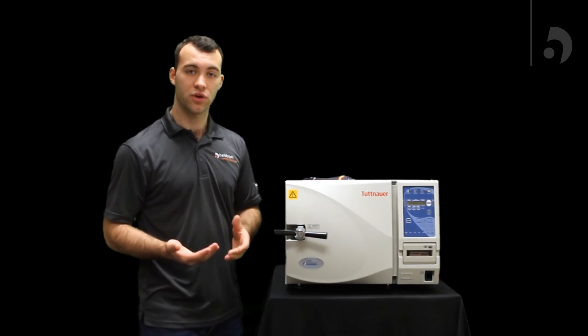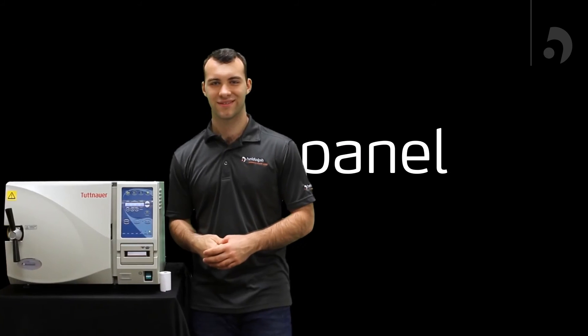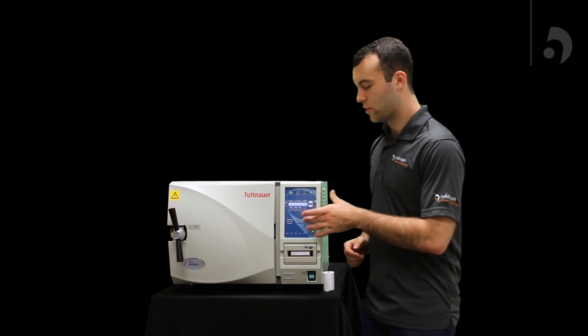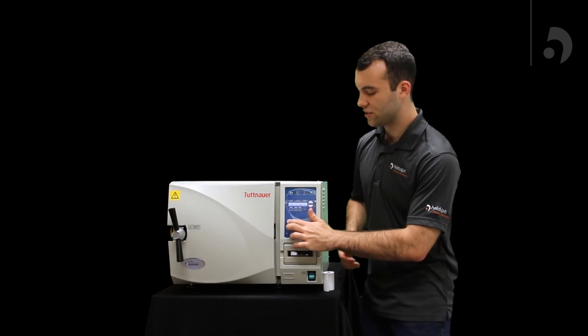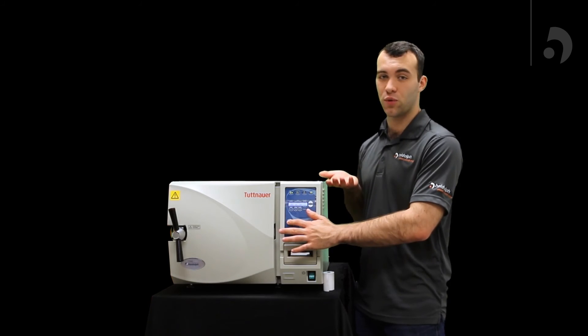And now to wrap up, I'm going to show you some troubleshooting fixes for your panel. If you find that your panel is frozen, the simplest fix of this problem is just to hold the stop button for two seconds. This should reset your panel, and that should go right back on working.